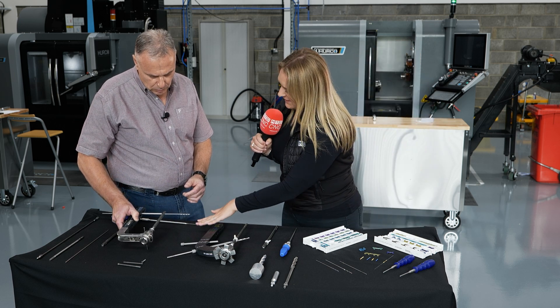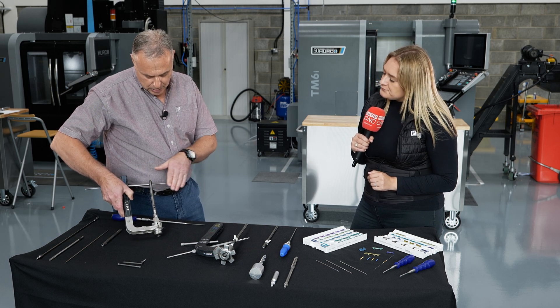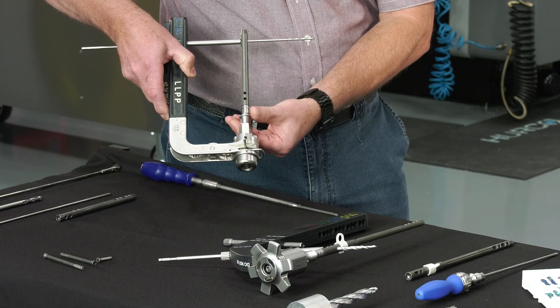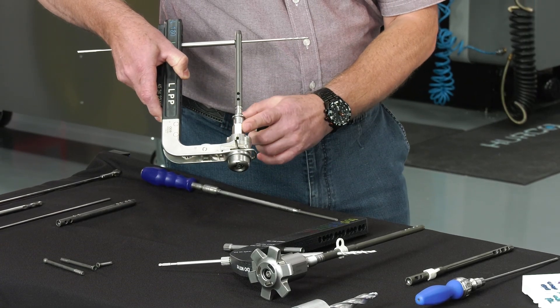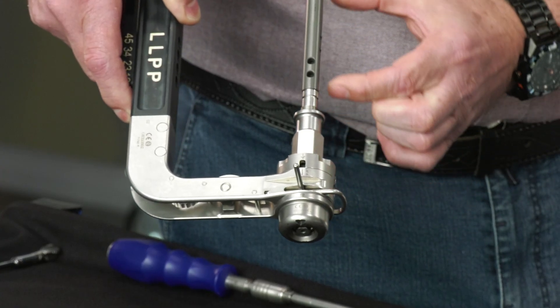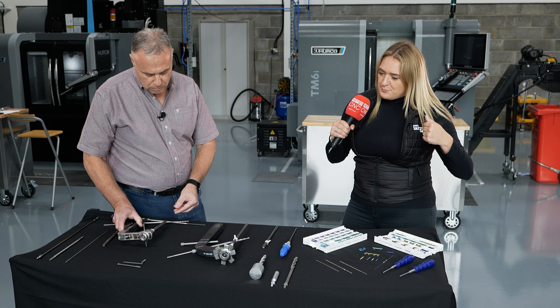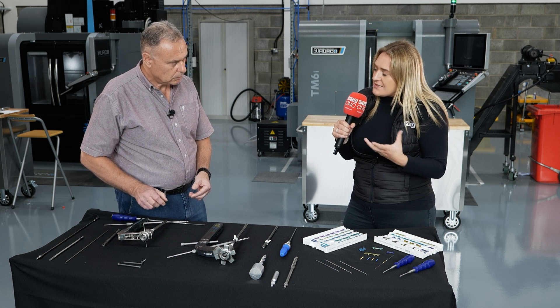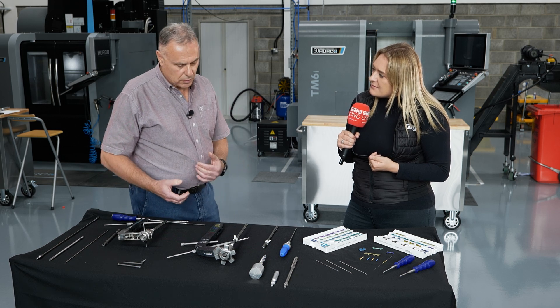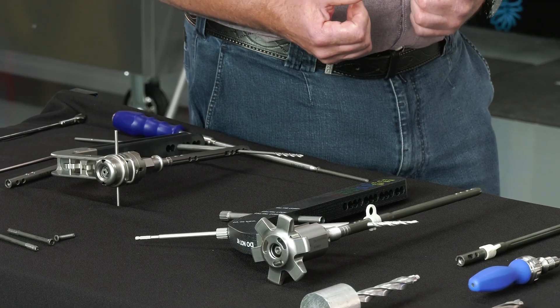So what's the difference between these two here? This is our first generation — this uses this nut here to compress the three joints. So that means the bone is then pushed together and fused. What does that difference make? Fusing of the three joints will reduce the pain of the joints.